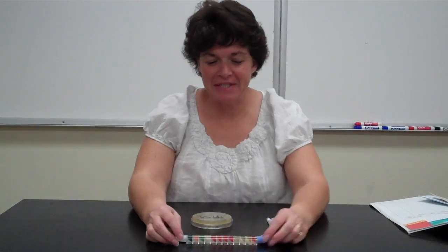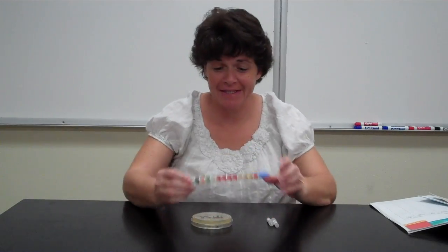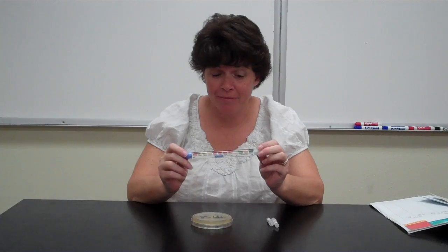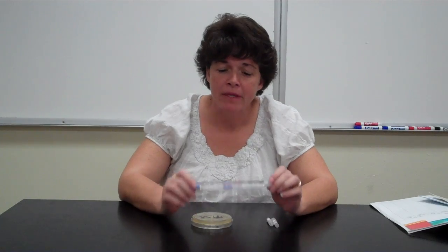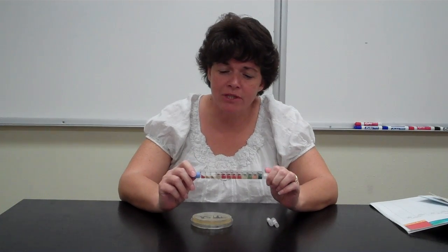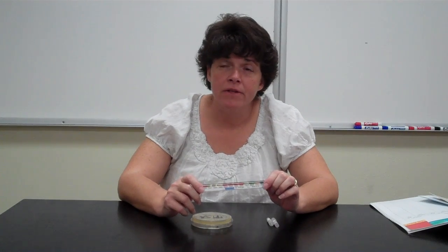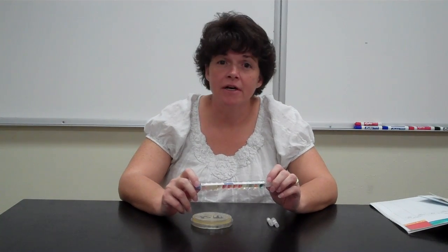Okay, I'm going to sit down for this one in hopes that you can see this and me at the same time and be able to see what the compartments look like. Now, in this particular lab, we're going to be looking at this multi-test system, which allows doctors to determine the bacterial cause of intestinal symptoms.